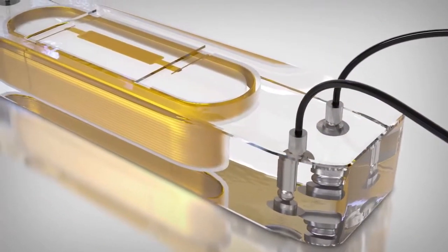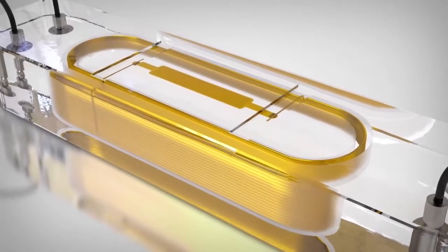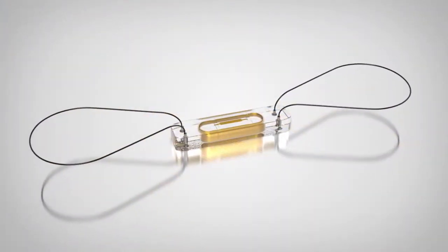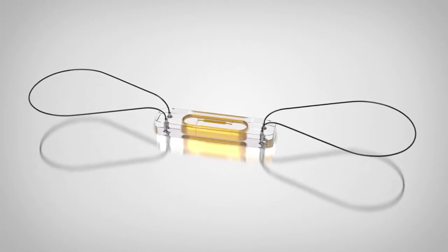It's called the CardioMEMS HF system, and your doctor may recommend that you get and use this system. St. Jude Medical is the only company in the world to offer an option like the CardioMEMS HF system.